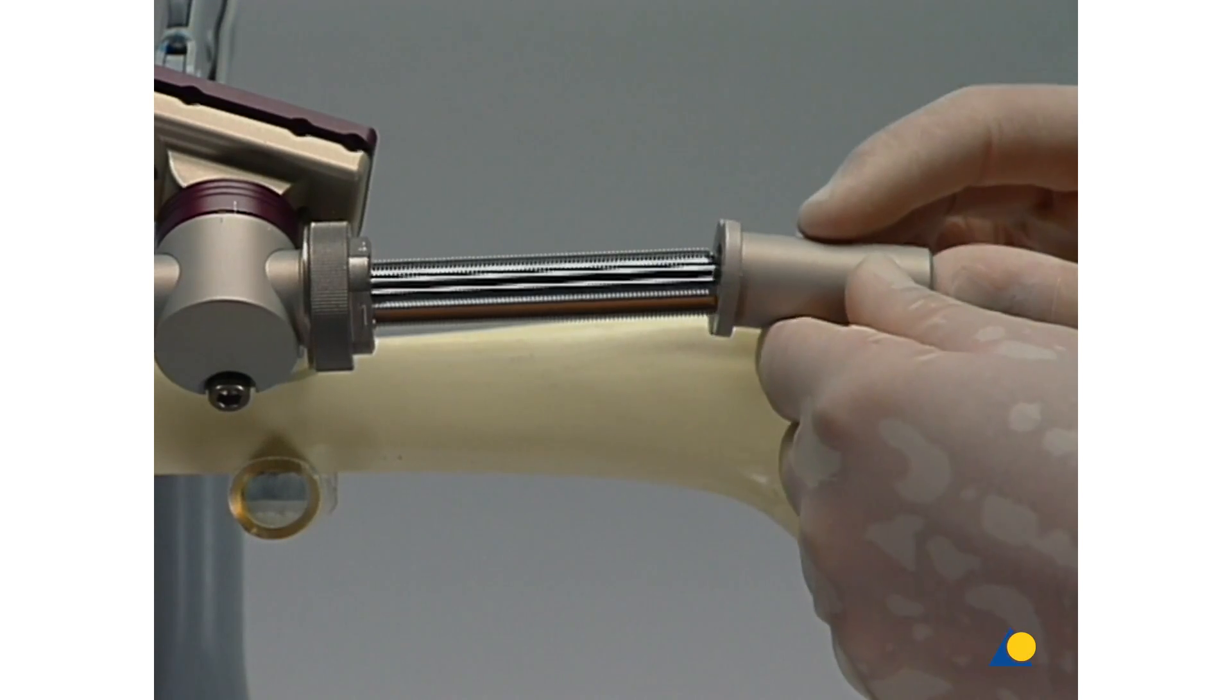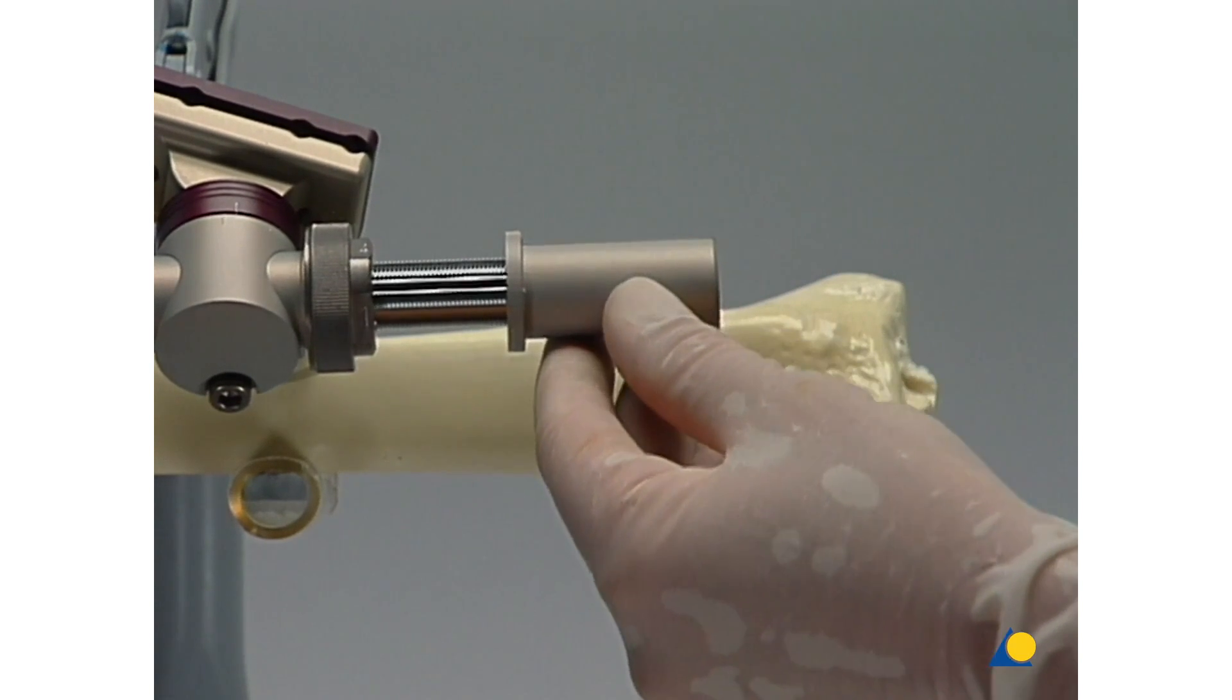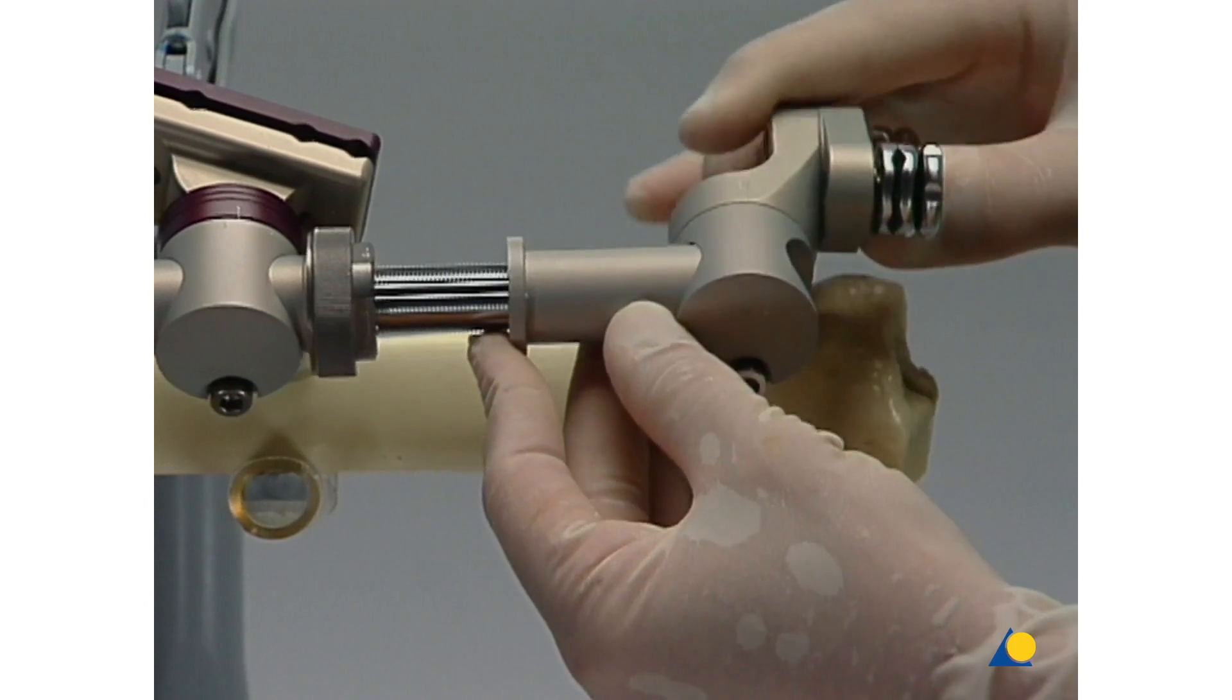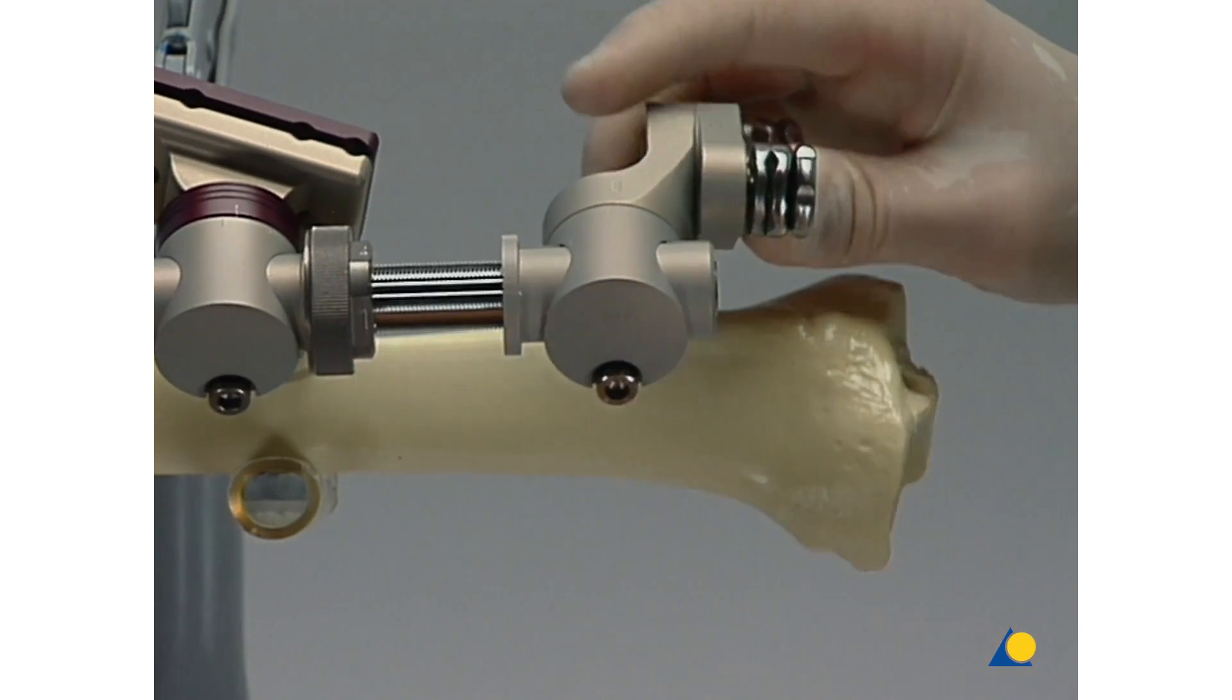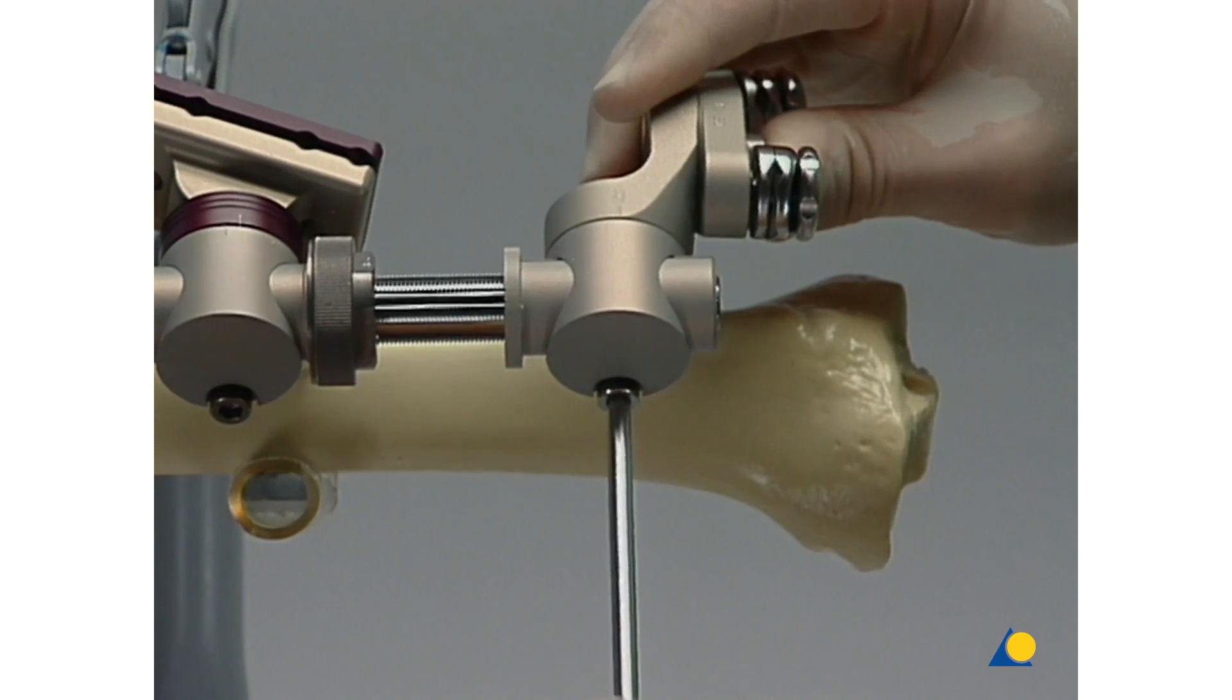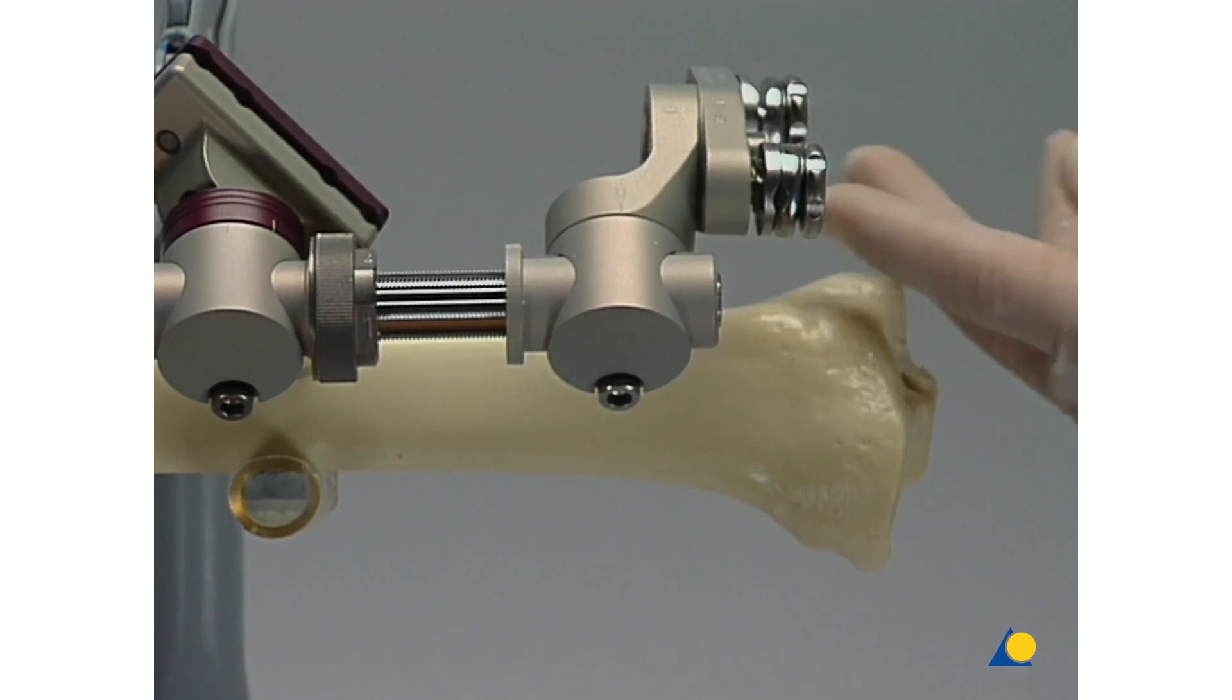At the other end of the spline shaft, the appropriate clamp, in this case a T-assembly, can be attached to the second two-piece sleeve.